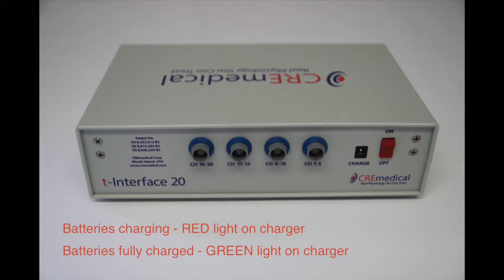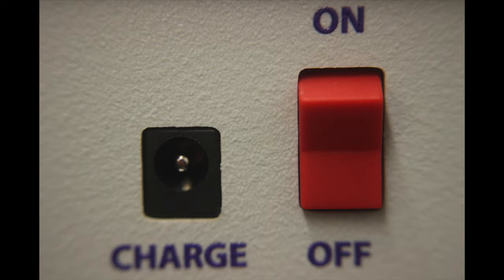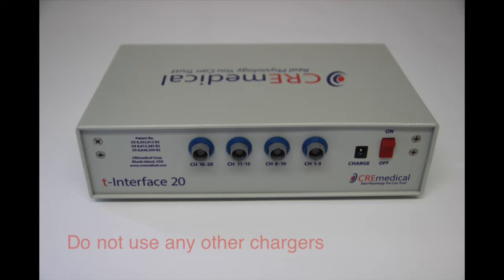When the batteries are charging, the light on the charger will be red. When the batteries are fully charged, the light on the charger will turn green. The T-interface 20 power switch needs to be in the off position when the charger is connected in order to charge the batteries. Do not use any other charger than the charger provided for the T-interface 20.